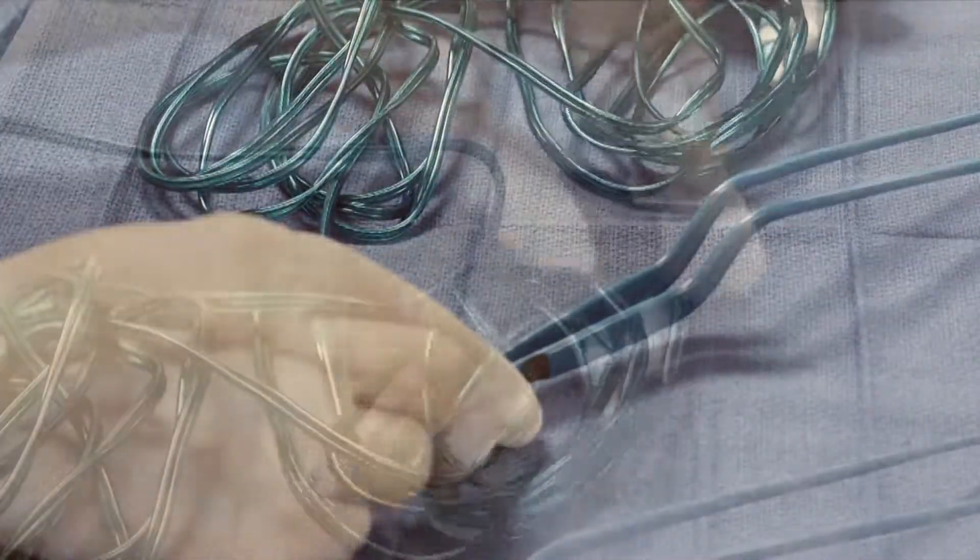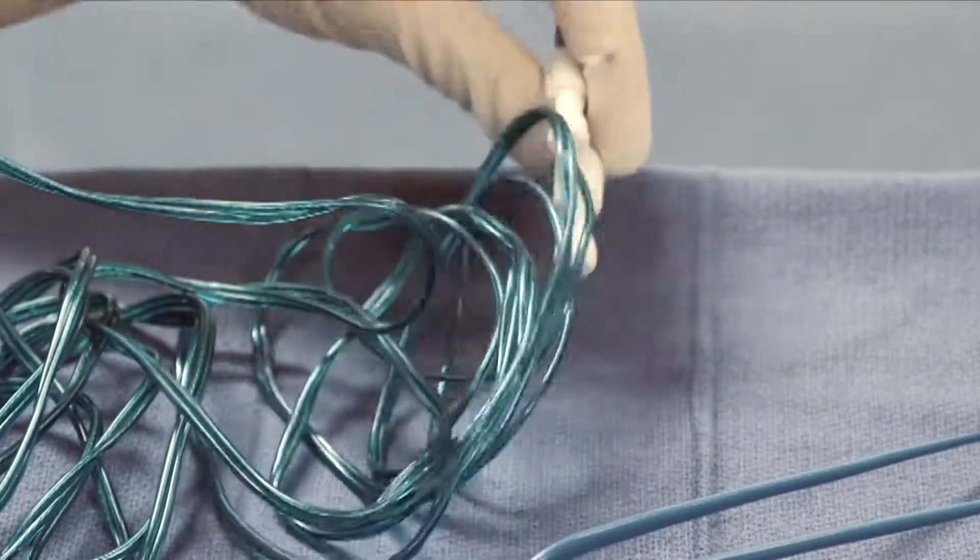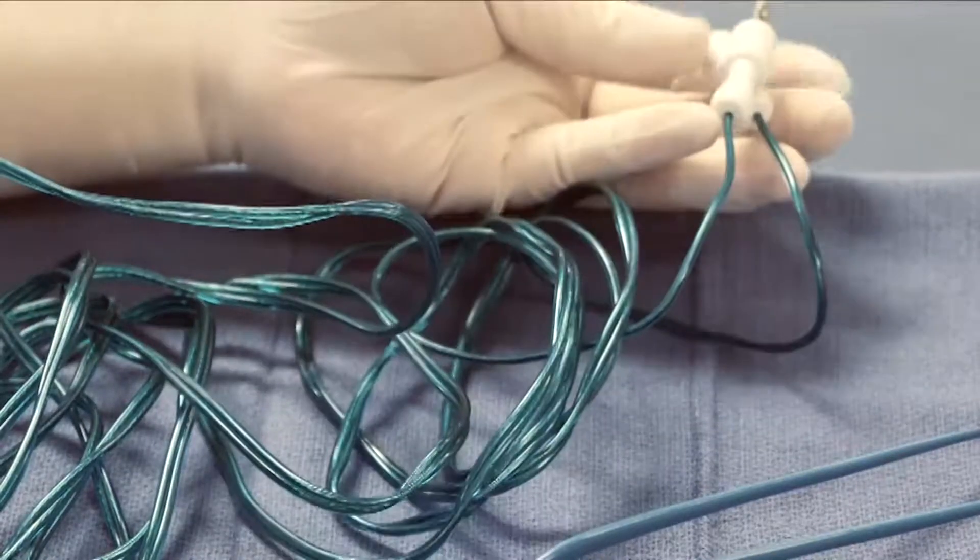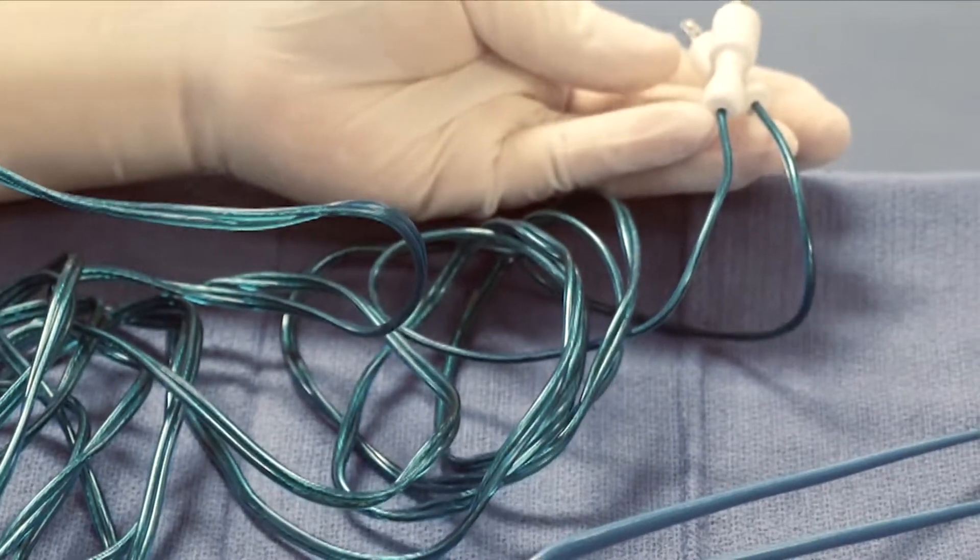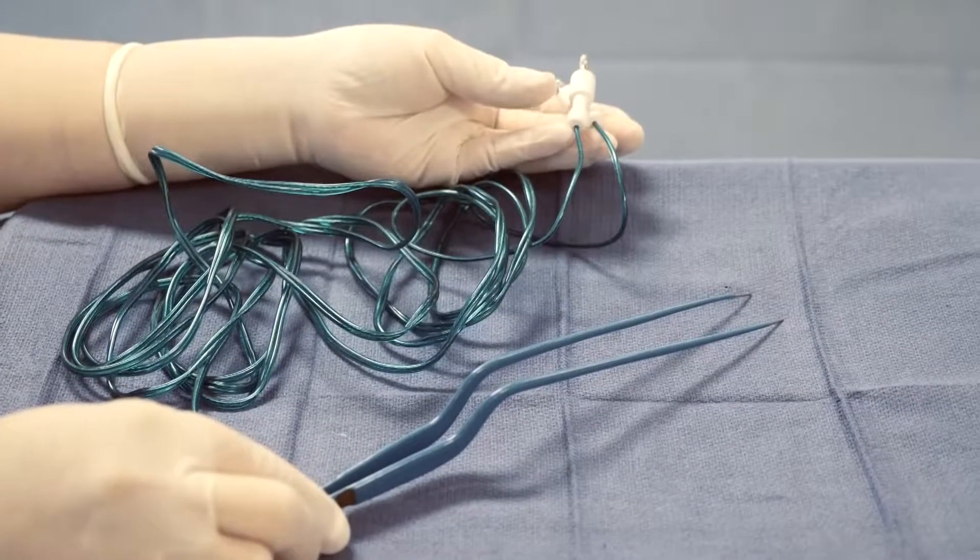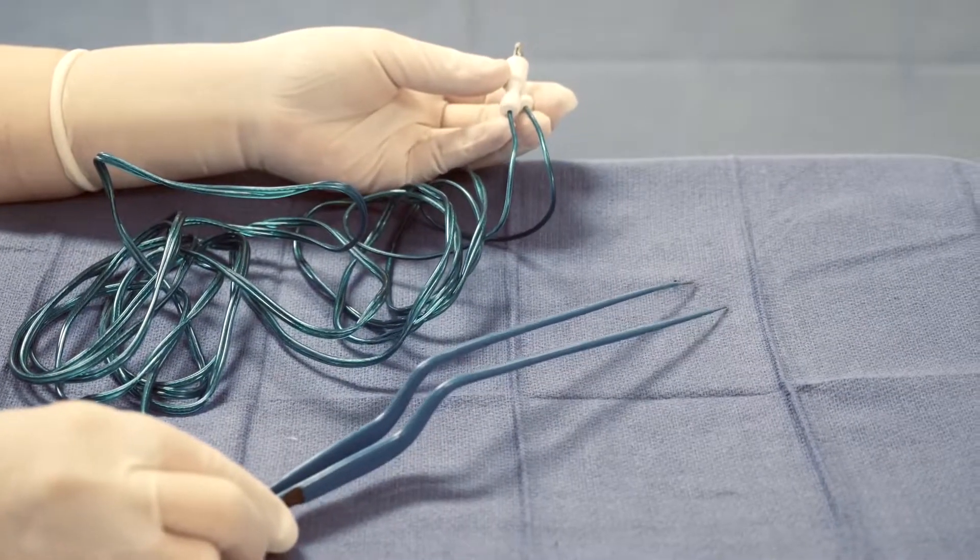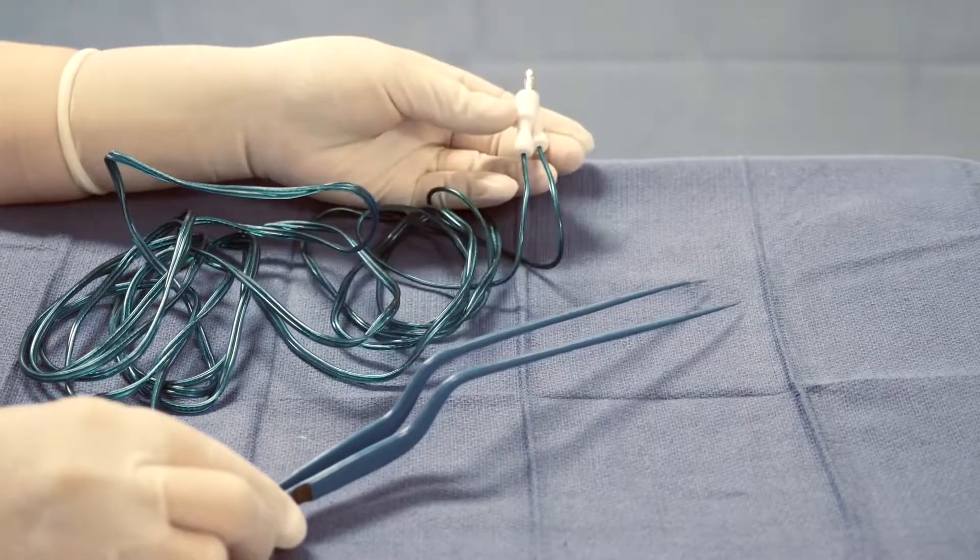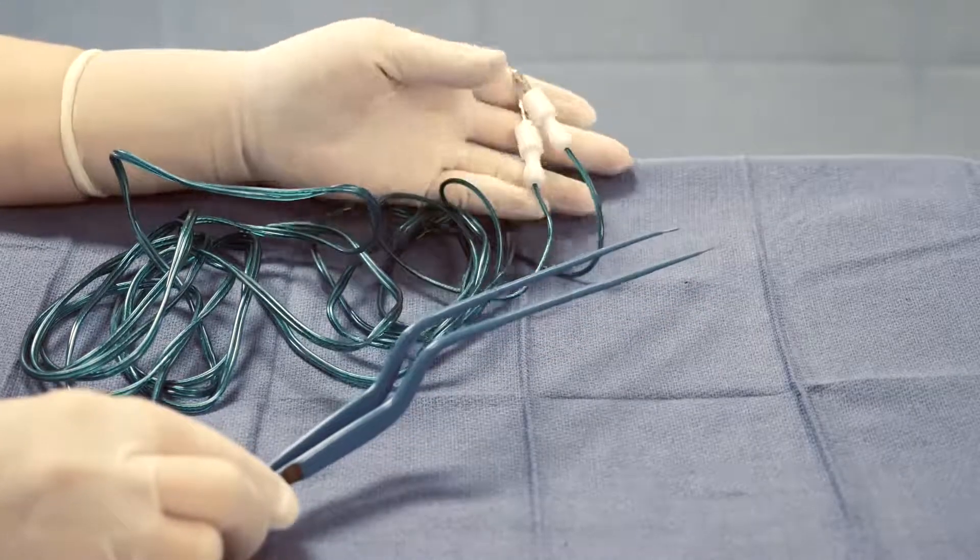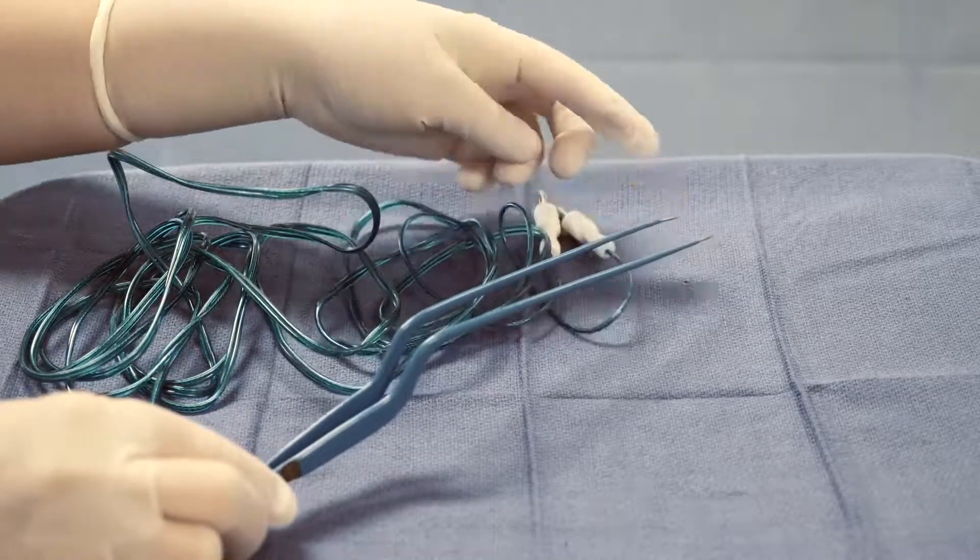By attaching these two, the surgeon will be able to cauterize any tissue between these two jaws.